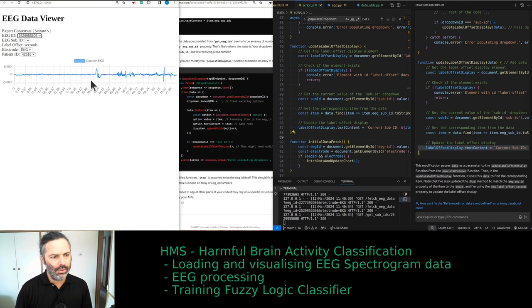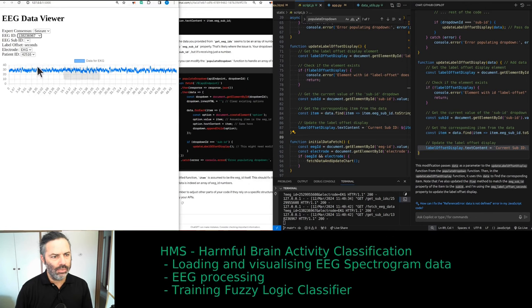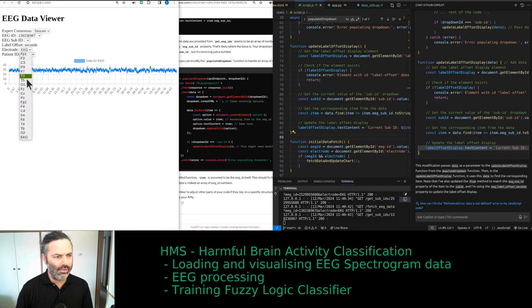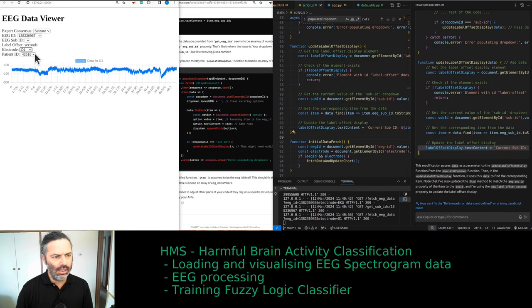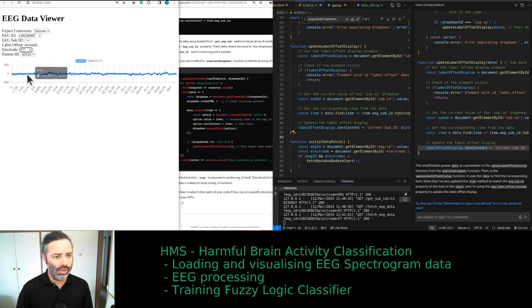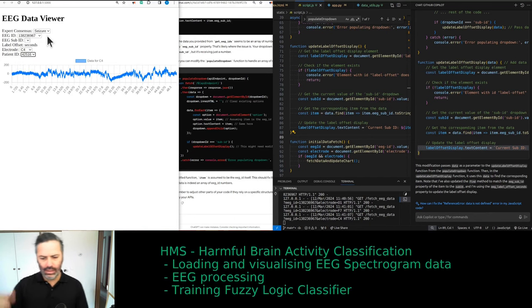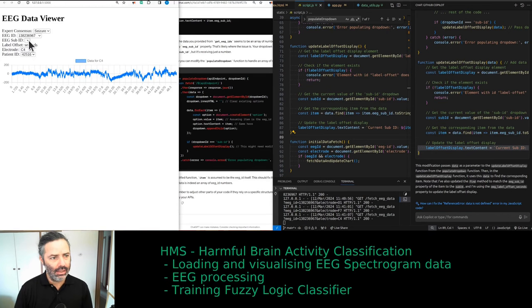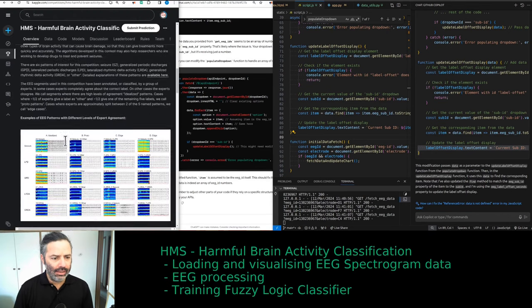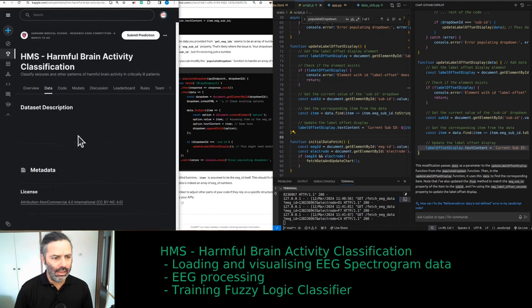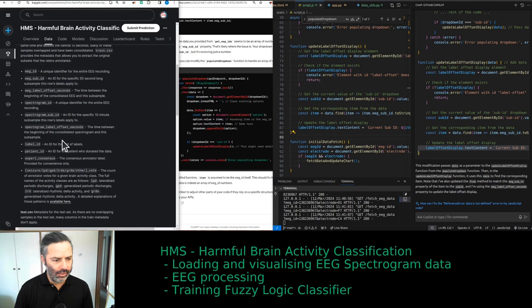In most cases the ECG doesn't look very good — obviously rubbish. If this were a real ECG, the patient might be having other problems beyond the EEG recording, and the EEG itself is not great either. There are some DC shifts which shouldn't be there. This is segmented, not continuous data, which we don't particularly like — a good example of how not to store data.